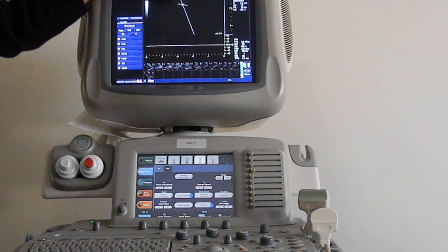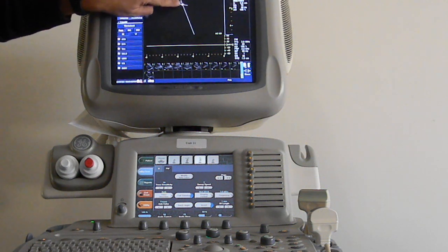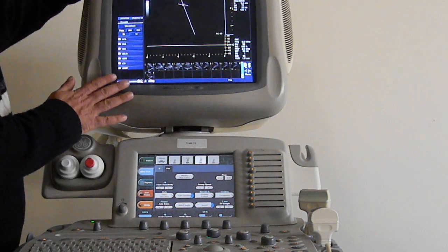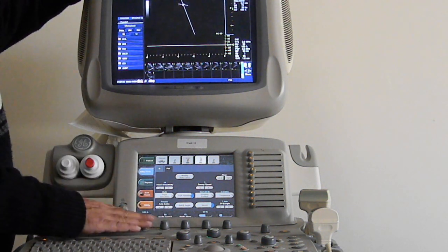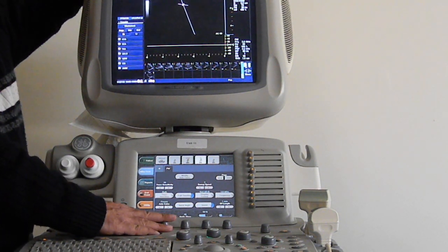Now again, when we get to ultrasound physics and start talking about actual Doppler readings and so forth, we can talk a bit about the direction of this window here. But literally, steering your beam, steering your sample window, etc., all functions will be controlled by the knobs here.